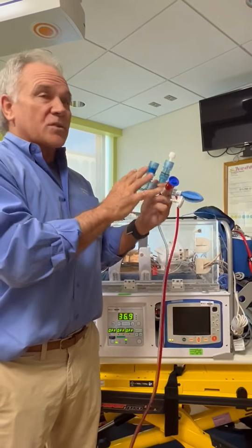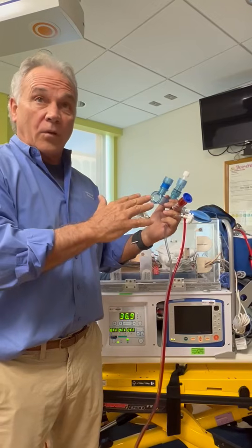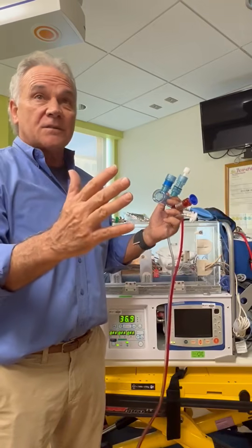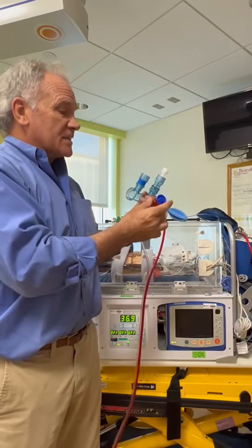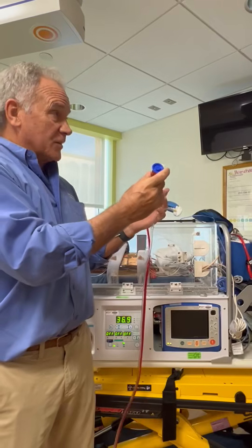So it's more similar to the jet in that one, you'll run a lower rate, and then you've got to slow it down. And y'all know why you slow it down, right? To give time for exhalation. Okay. And so you have the jet and you have the oscillator. The oscillator delivers a breath, sucks it out. And I'm going to explain the analogy of this compared to the oscillator, just to give you an idea.